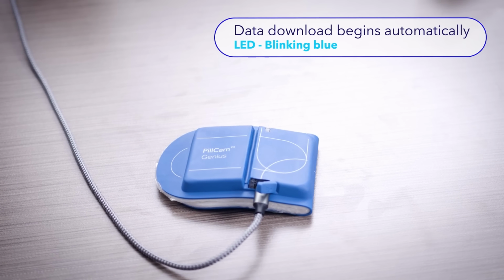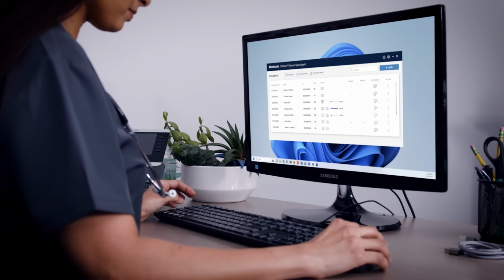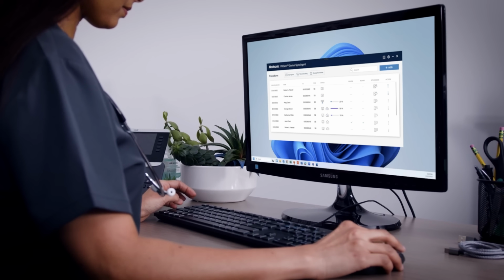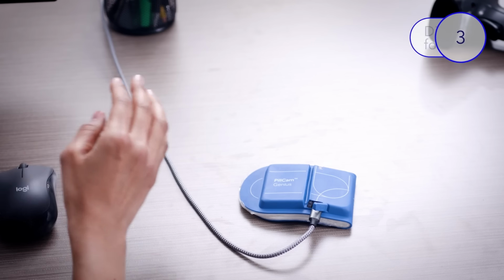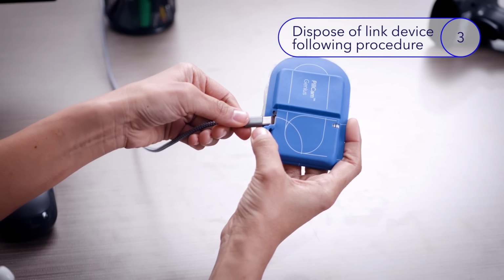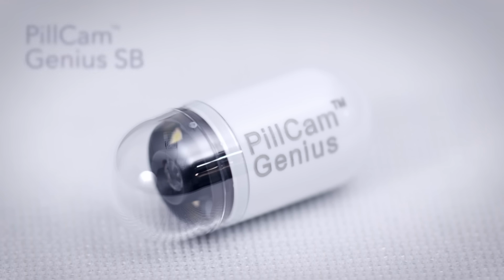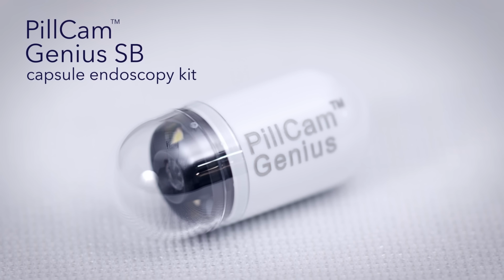While data is being transferred, the LED will blink blue and the status will be shown on the PillCam Genius Sync agent. When the download is complete, the LED will be a constant blue. At this point, simply dispose of the Link device following your clinic's procedures. This completes the patient's PillCam Genius SB capsule endoscopy.